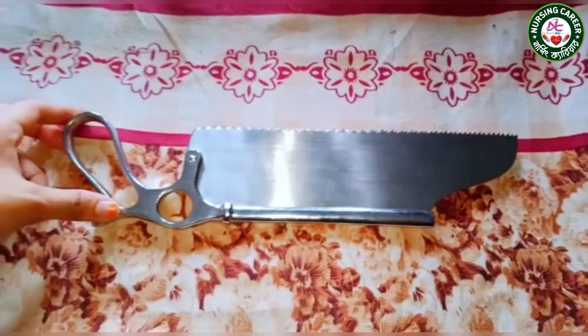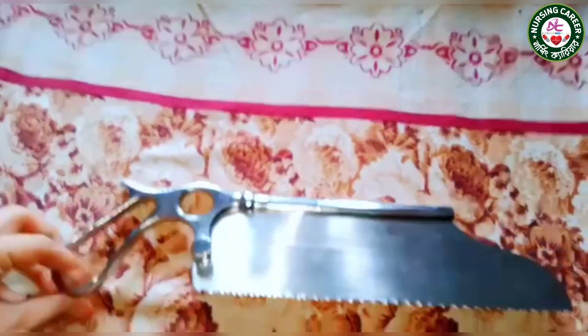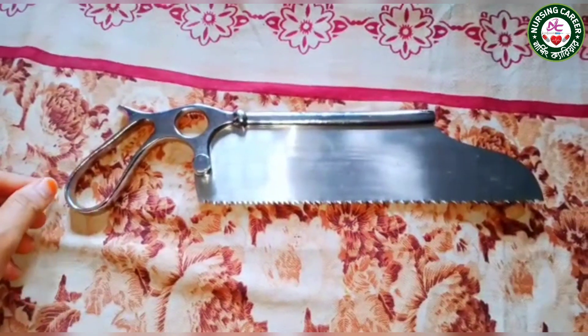This is a bone cutting saw. It is used to cut long bones and is used in amputation of a bone.